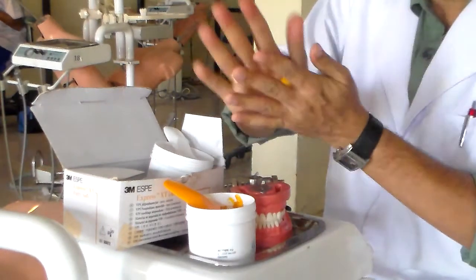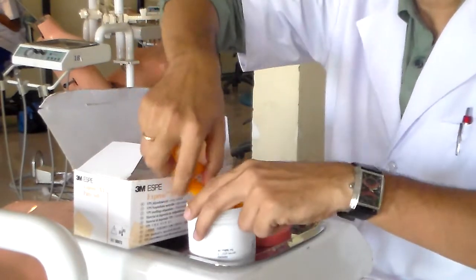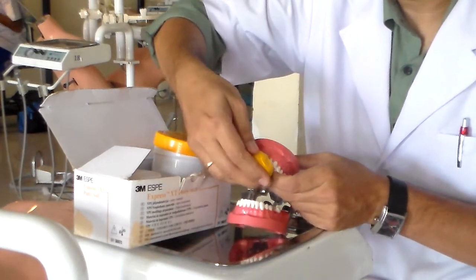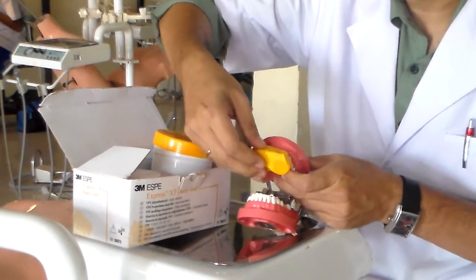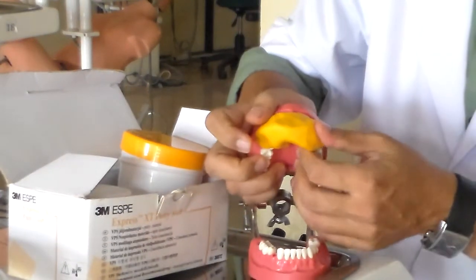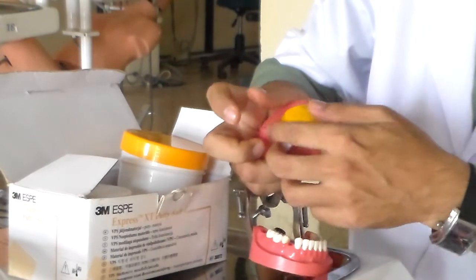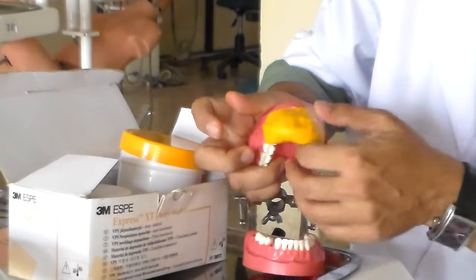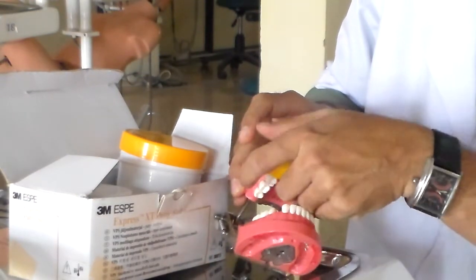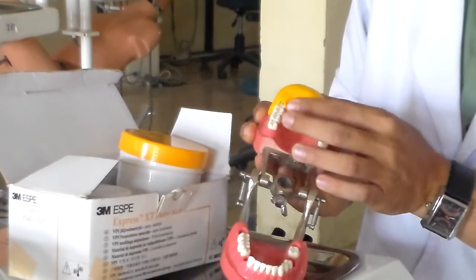At this stage, just roll it up and make a jig onto the Typodont. I think I just need to make a small one here. I'm going to put it on the Typodont and wait for it to set. You don't need to make one this big — it's a bit too big. You could make one that's a bit smaller. Once it is set, we can have a good jig.